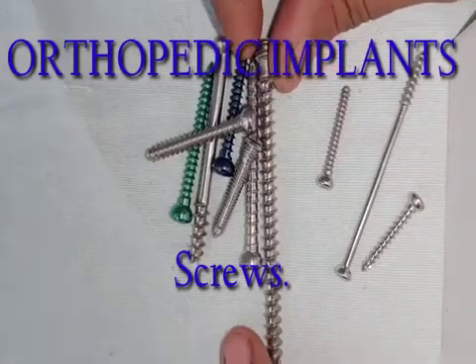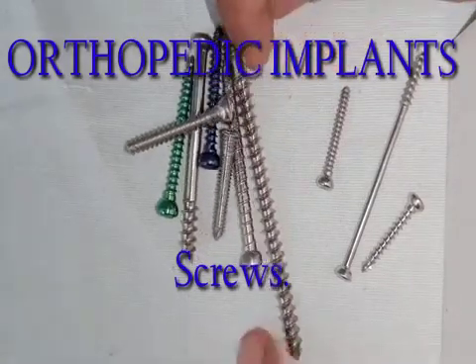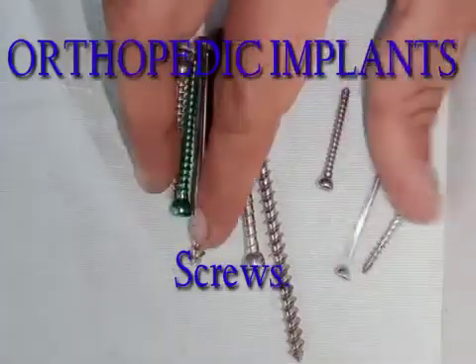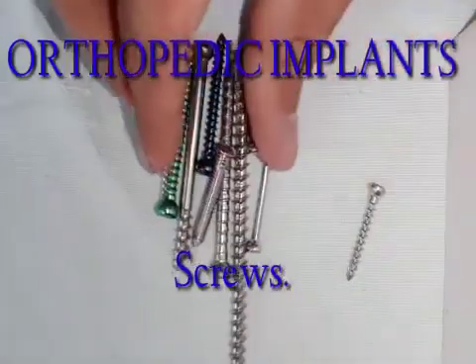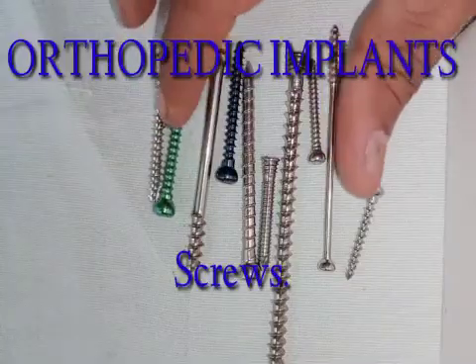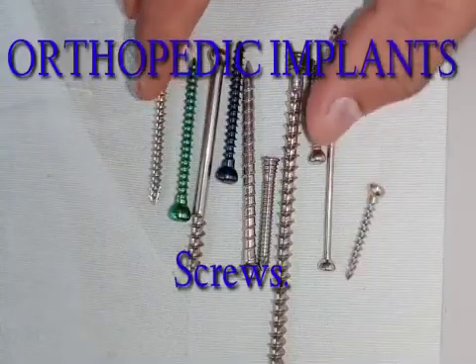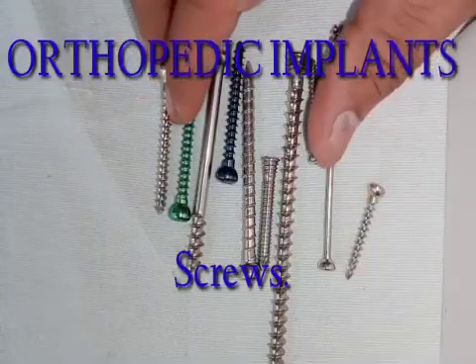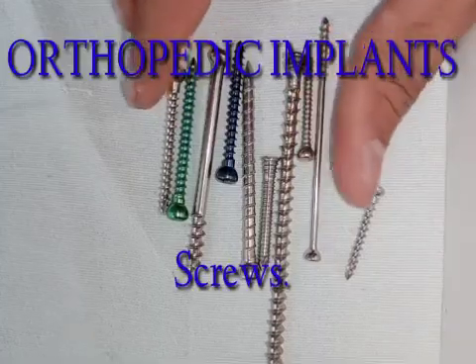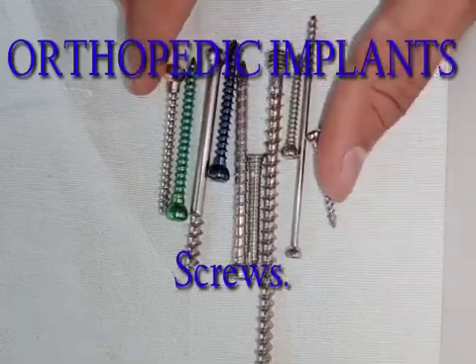Hello and welcome to today's session on orthopedic implants. Today we will be covering screws. When you look at all these orthopedic screws and implants, they all look the same. So let's see whether we can make any sense of what these screws are, how they are used, and what makes each of them different.